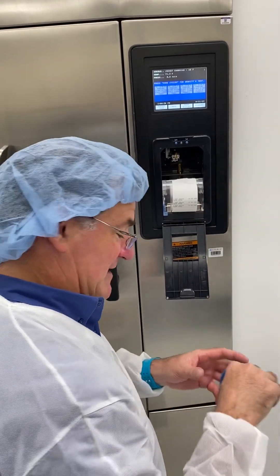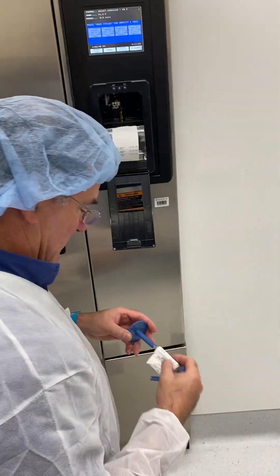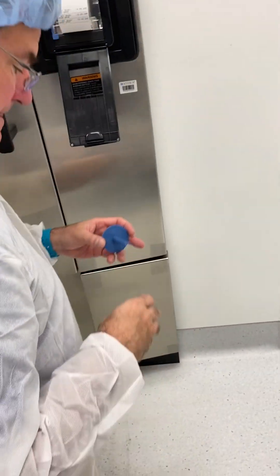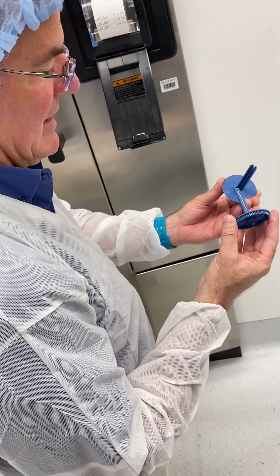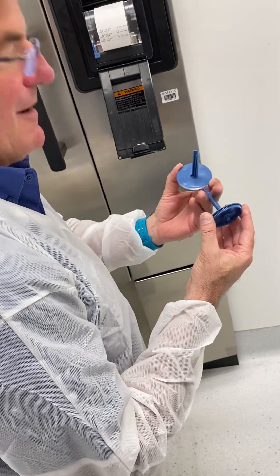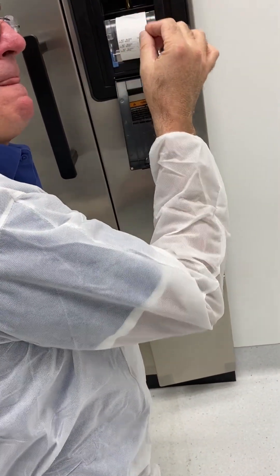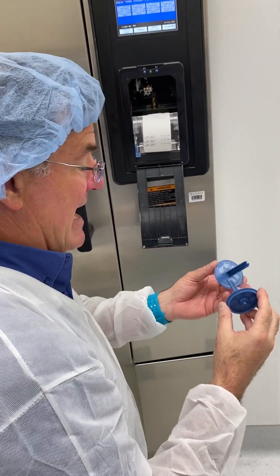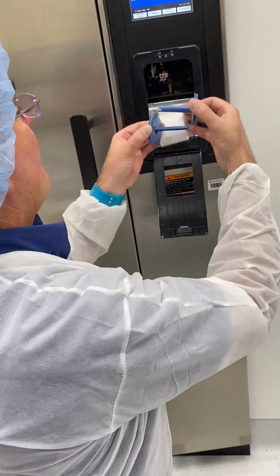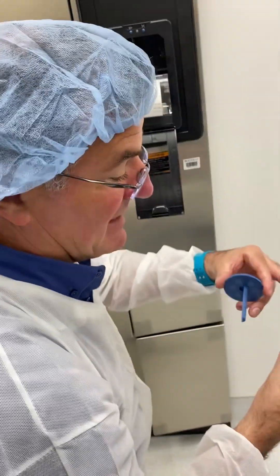Now this is the part that's not fun. This take-up reel is going to come apart and come off. I'll tell you right now how this take-up reel works — you could forget all of this and just get in the habit of tearing off your tape after every cycle.